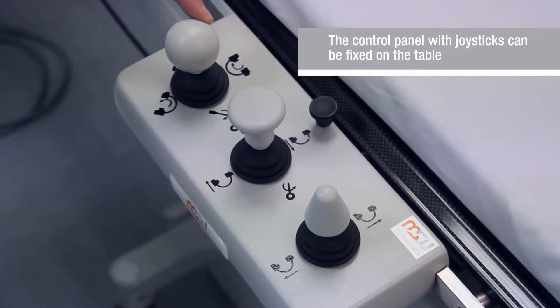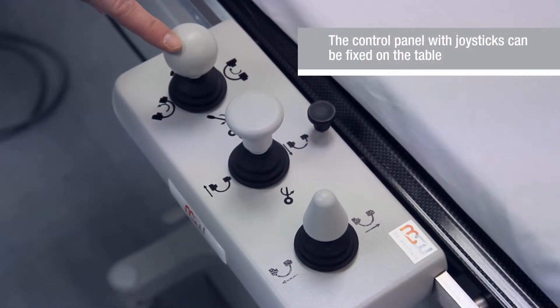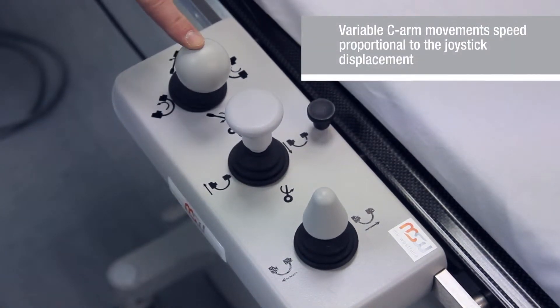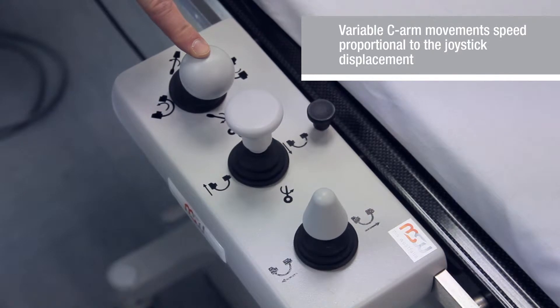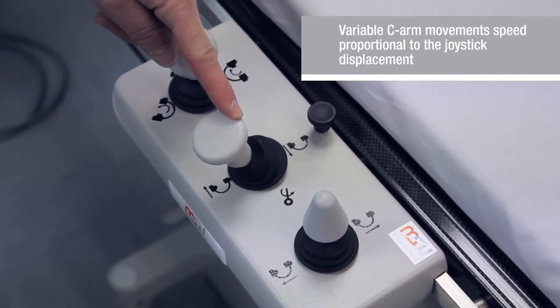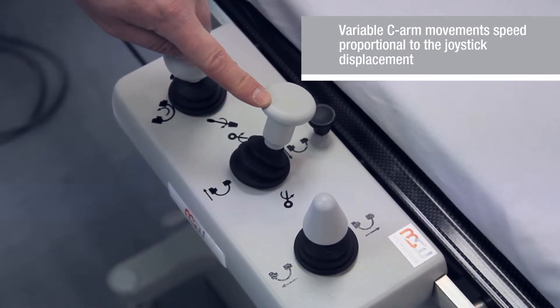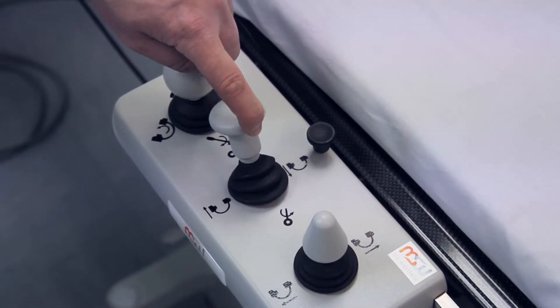The control panel with joysticks can be attached to an operating table. Simple symbols show the direction. The force used while operating the joystick regulates the speed of the C-arm movement. Joysticks can rotate the C-arm in orbital, horizontal, lateral and vertical direction, like the control panels.